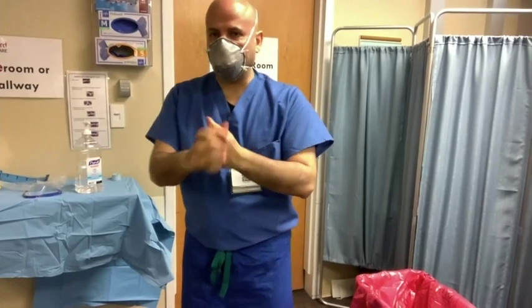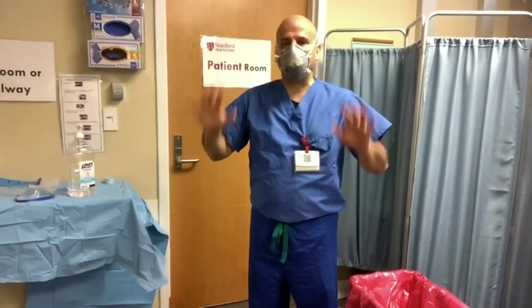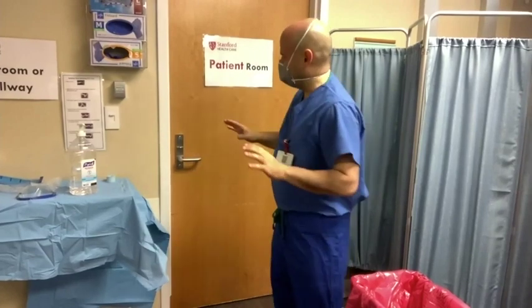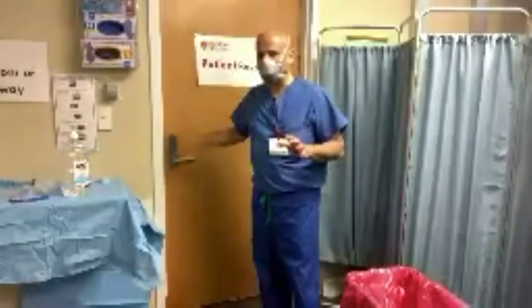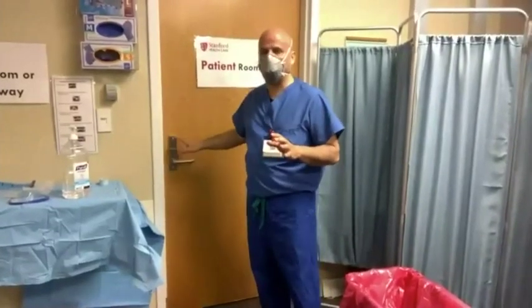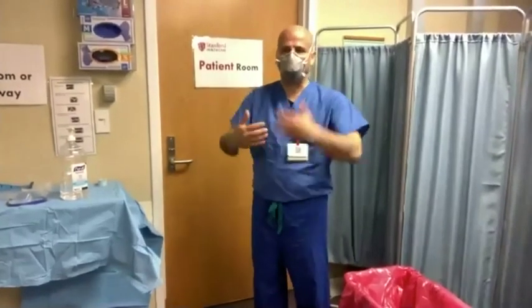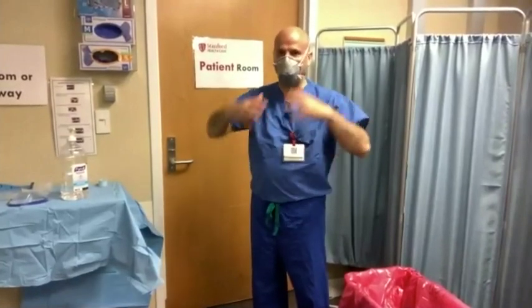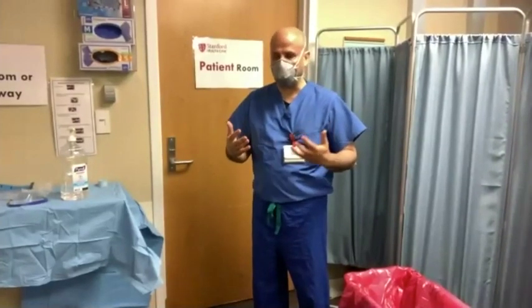You should not be wearing anything other than the mask inside the patient room when you touch the doorknob. There's a lot of feedback from nursing staff that this doorknob should be clean at all times — you should not touch it with dirty gloves. You could touch it with clean gloves. The biggest question is why are we exposing ourselves to the virus inside? But you're about six feet from the patient, so the likelihood is small. Even if it's aerosolized, you have the N95 mask. Then you exit and go into the anteroom or hallway.